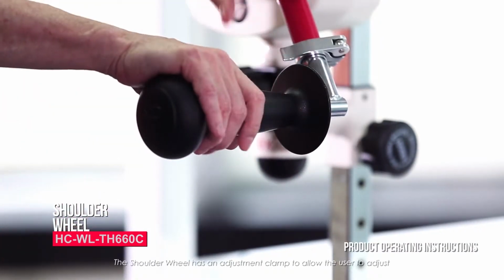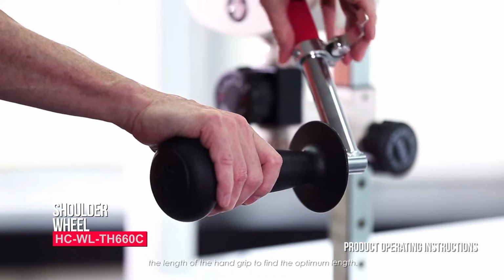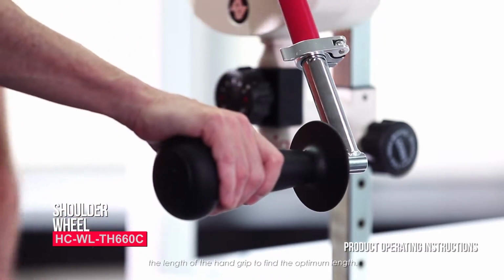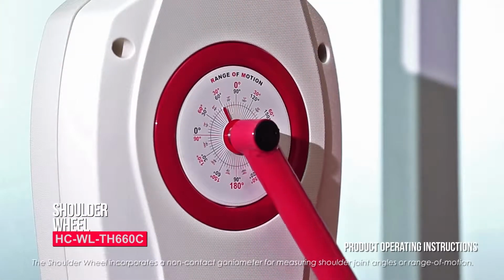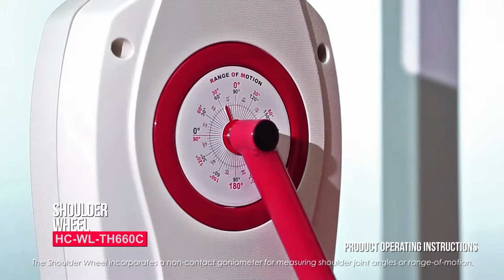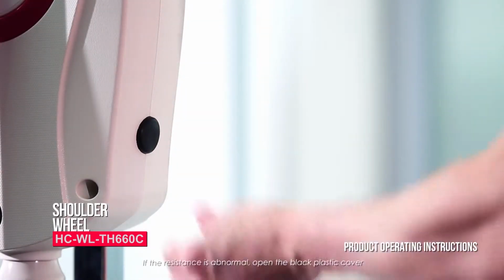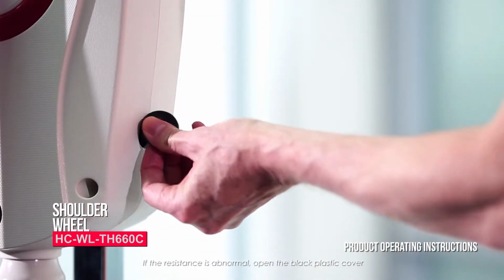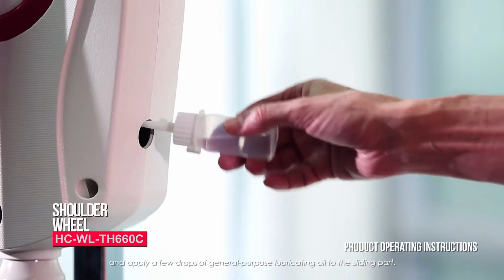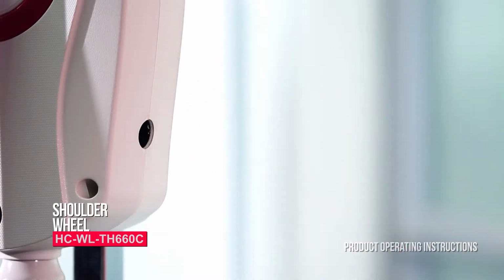The shoulder wheel has an adjustment clamp to allow the user to adjust the length of the hand grip to find the optimal length. The shoulder wheel incorporates a non-contact goniometer for measuring shoulder joint angles or range of motion. If the resistance is abnormal, open the black plastic cover and apply a few drops of general-purpose lubricating oil to the sliding part.